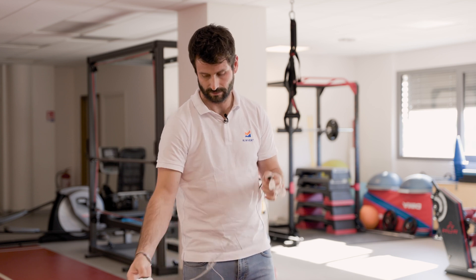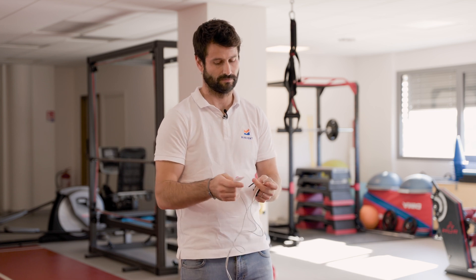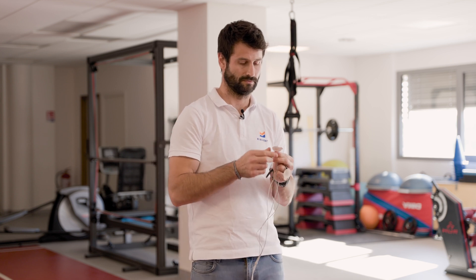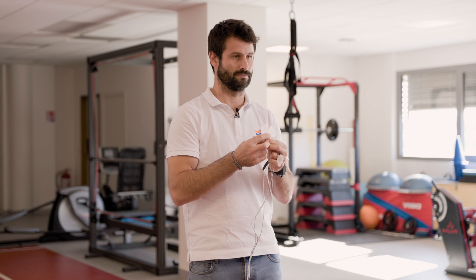When placing electrodes on the device, the distance between the electrodes is predetermined. For the second channel, optimal surface EMG practice recommends maintaining a distance between the red and white electrodes no greater than 4 cm and no less than 1 cm — this is crucial for optimal signal reception. Beyond 4 cm, there is a risk of the signal attempting to capture intermuscular activity, delving too deep and picking up signals from deeper muscles.